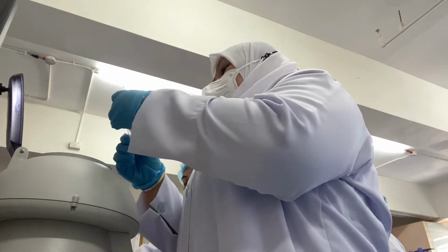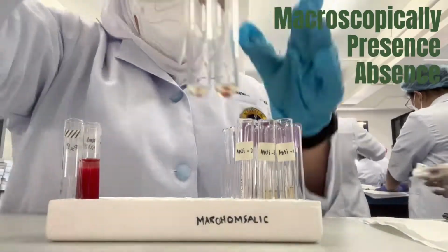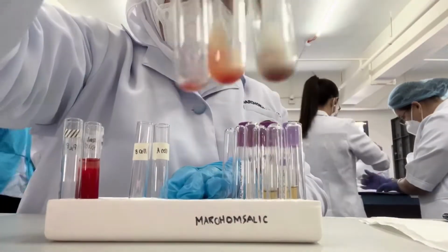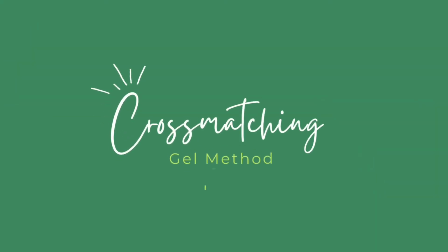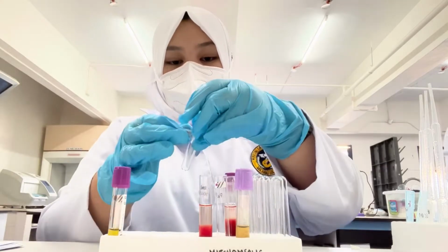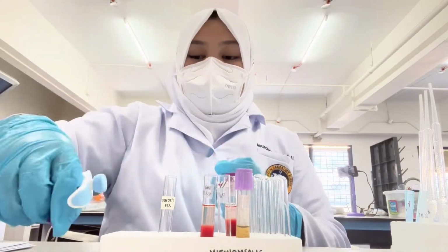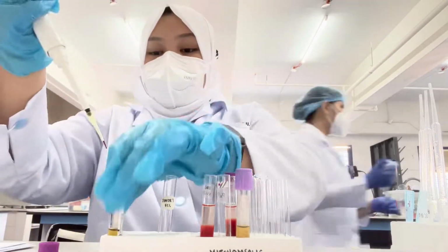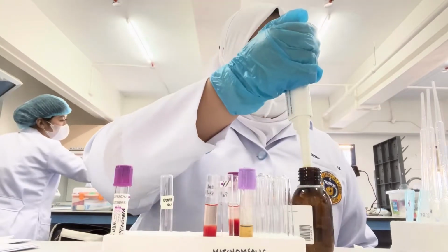After centrifugation, read macroscopically with a direct light source for the presence or absence of agglutination. Agglutination of tested red cells is interpreted as positive test results. The fifth procedure is cross-matching using gel method. Step 1 is to label the tube. Step 2, dilute 10 UL donor's red cell with 200 UL DG gel sol to prepare 1% red cell suspension.